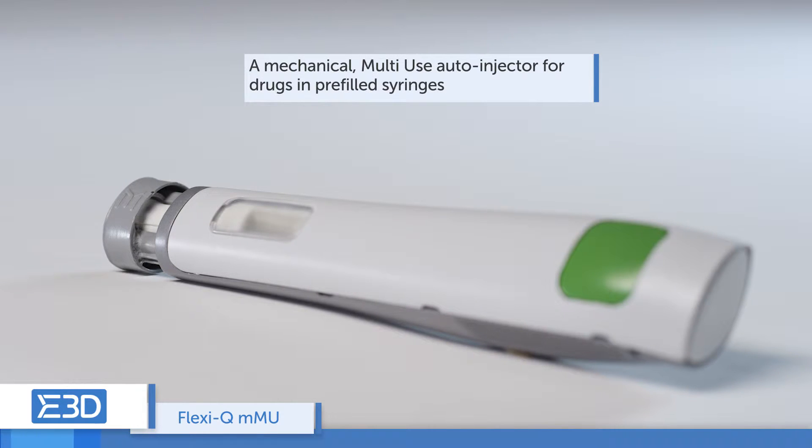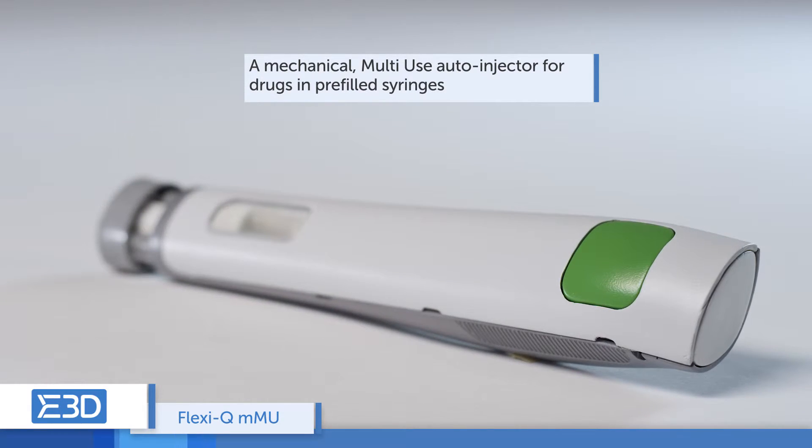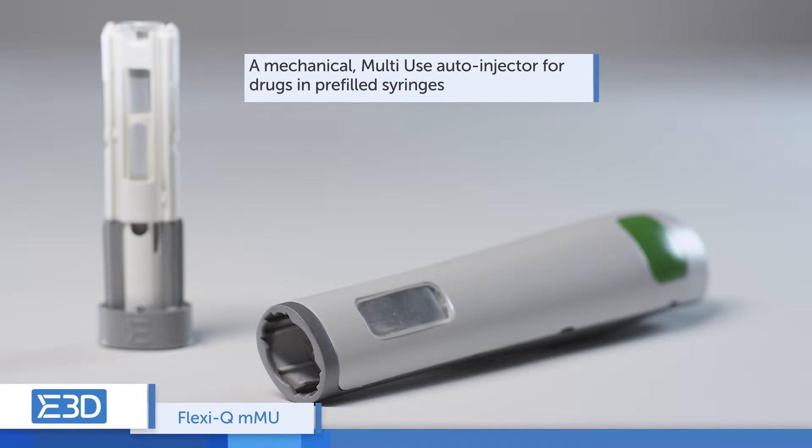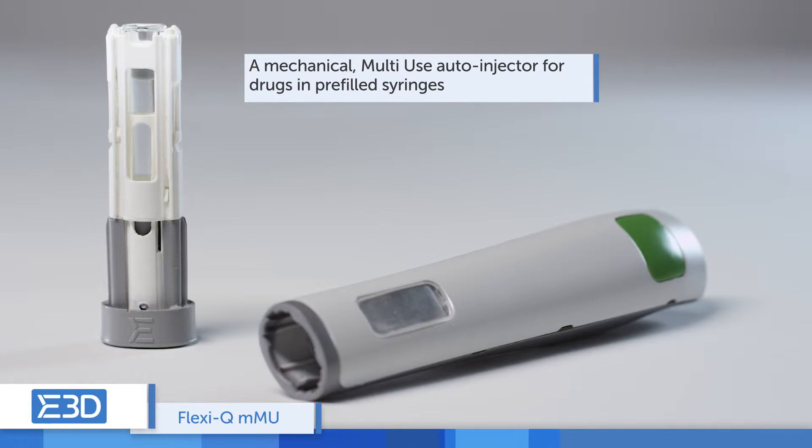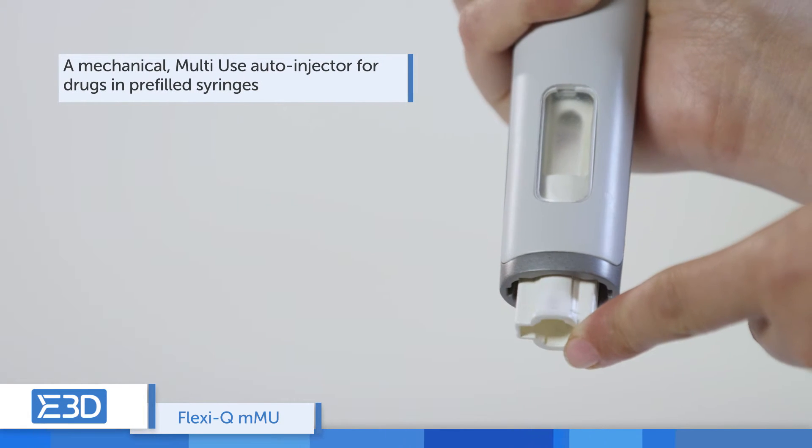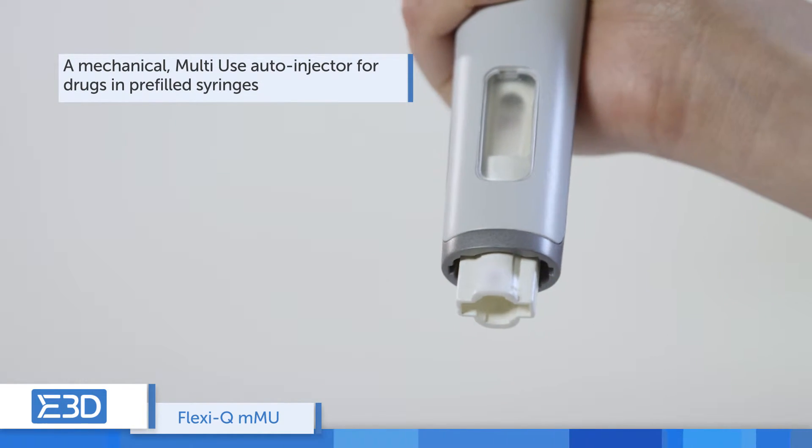The FlexiQ MMU is a mechanical multi-use auto-injector for drugs in pre-filled syringes. This cost-effective device is comprised of a mechanical reusable driving unit and a needle-protected disposable cassette.